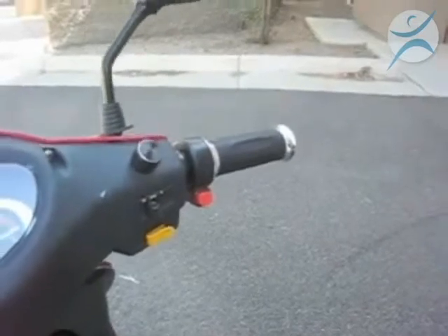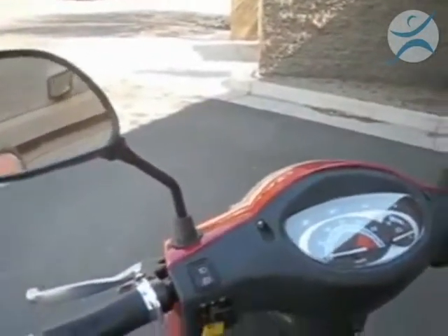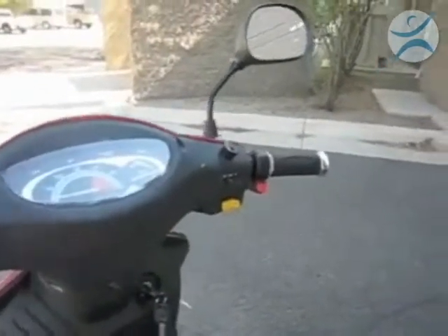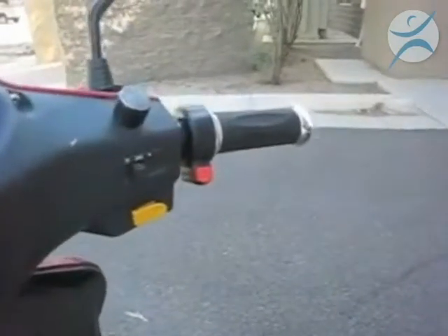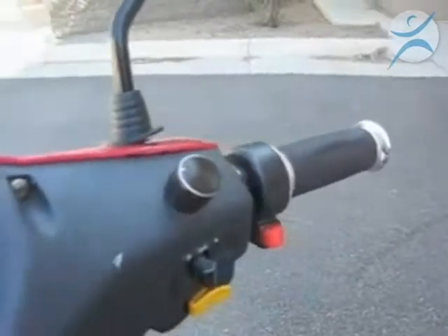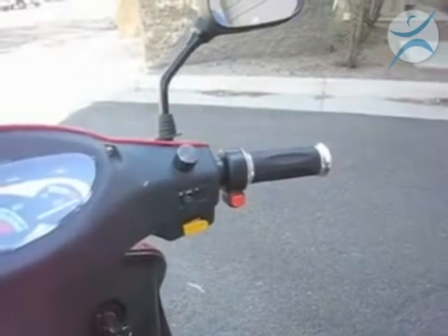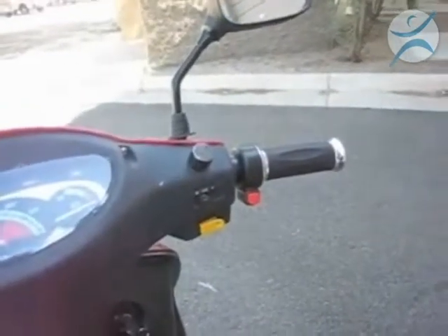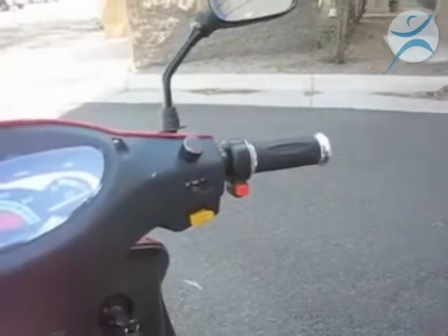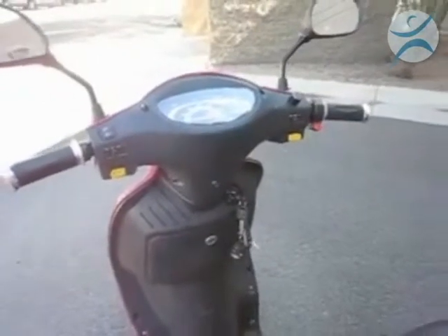The mirrors come standard on this scooter as well. They're left and right side view mirrors, which enable you to ride and feel very secure knowing what's around you. The other nice feature is the variable speed control dial, which enables you to reduce the power of the scooter by 50%. If you're inside a building or in a crowded area, you can turn down that speed dial to easily control the speed of the scooter.